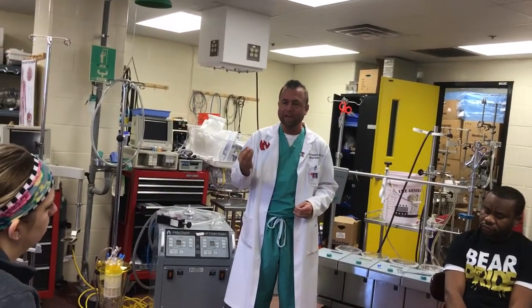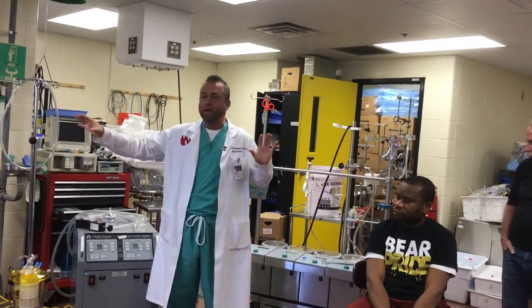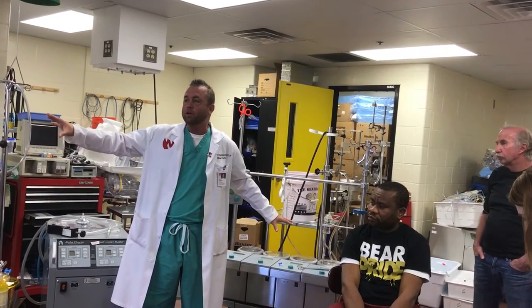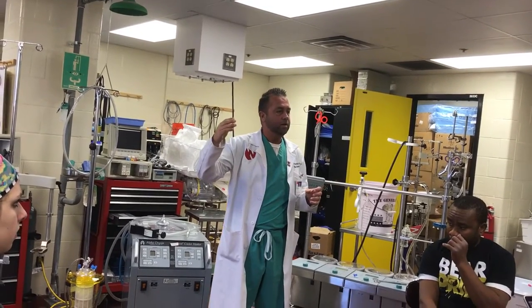The cardioplegia is considered an abnormal shunt. It pulls blood from the oxygenated arterial line, but instead of returning directly to the reservoir, it goes through the patient and eventually comes back into circulation. Additionally, cardioplegia has a regulated flow that tells us exactly what's going through the shunt, and we can measure volumes through it — which differs between the centrifugal pump and roller pump setups.